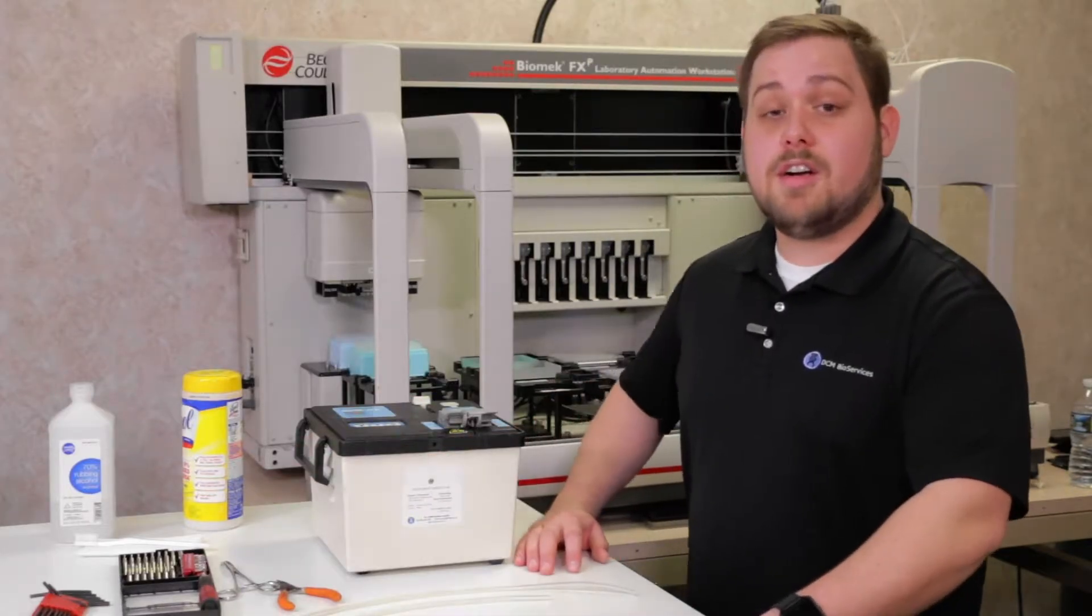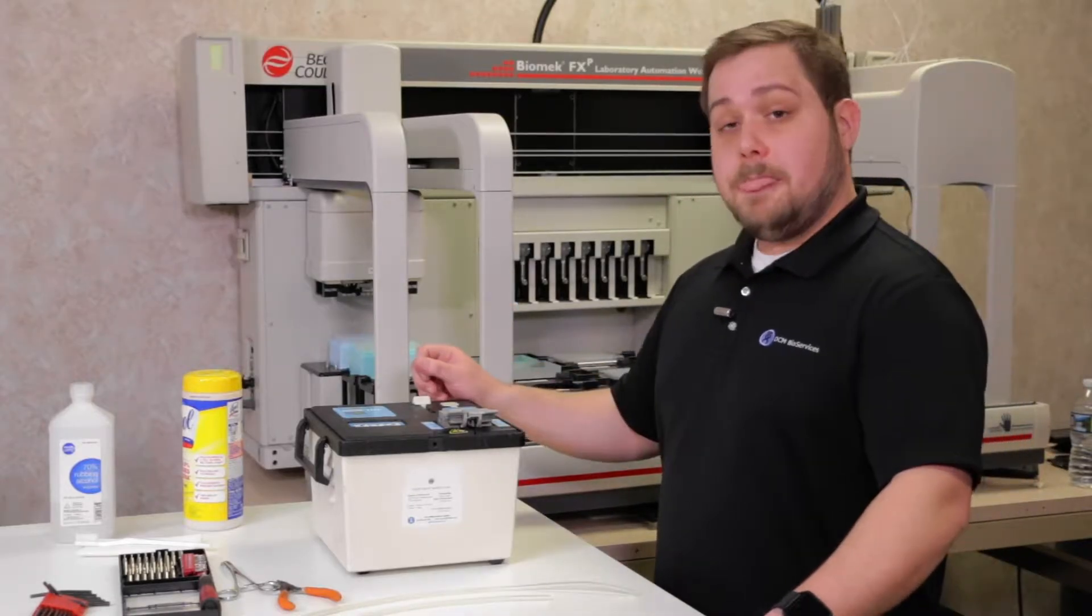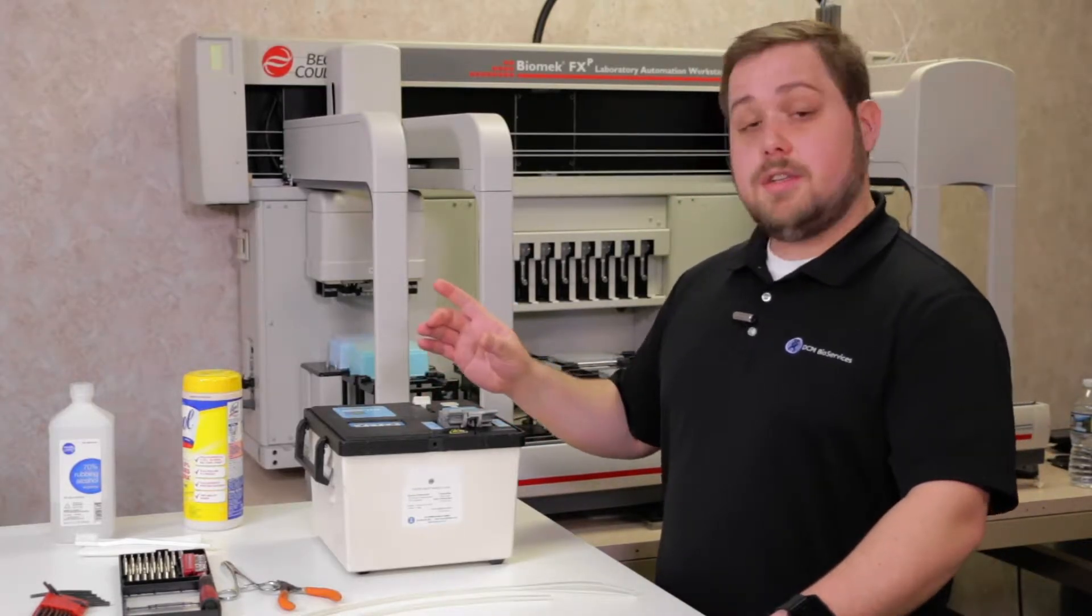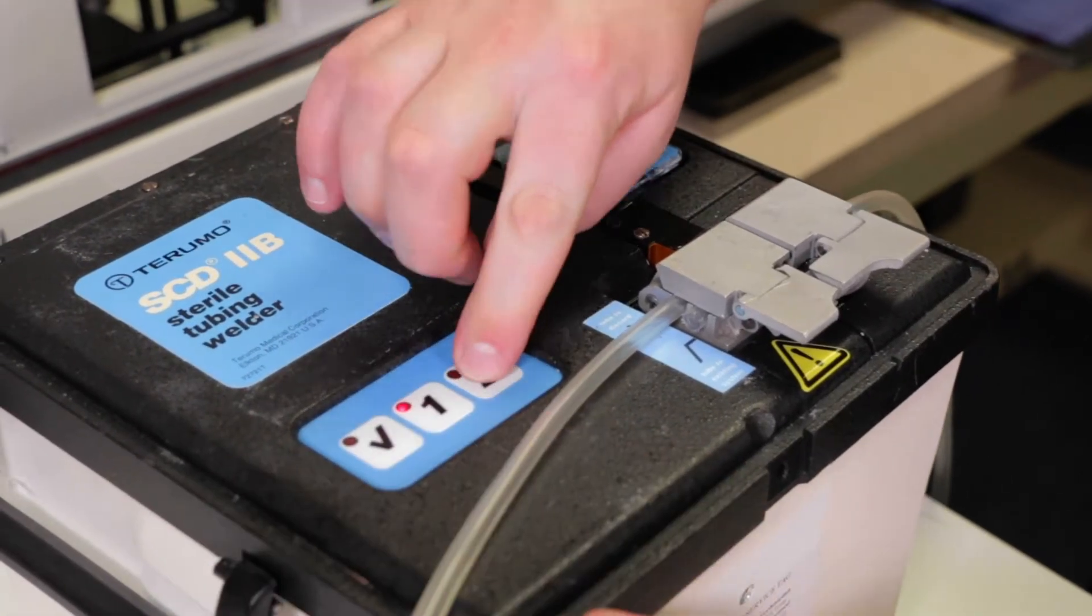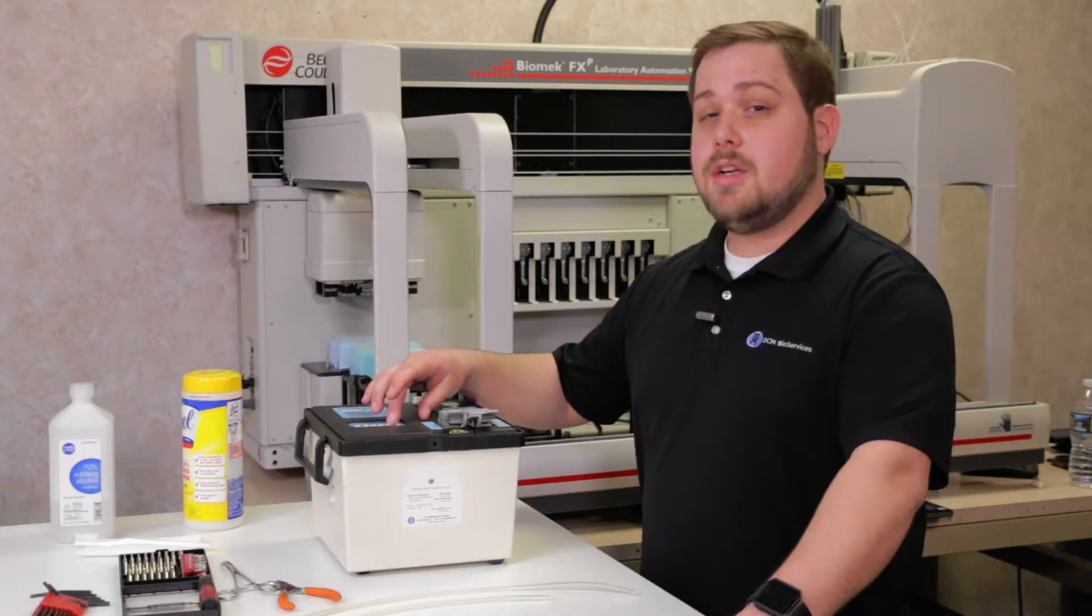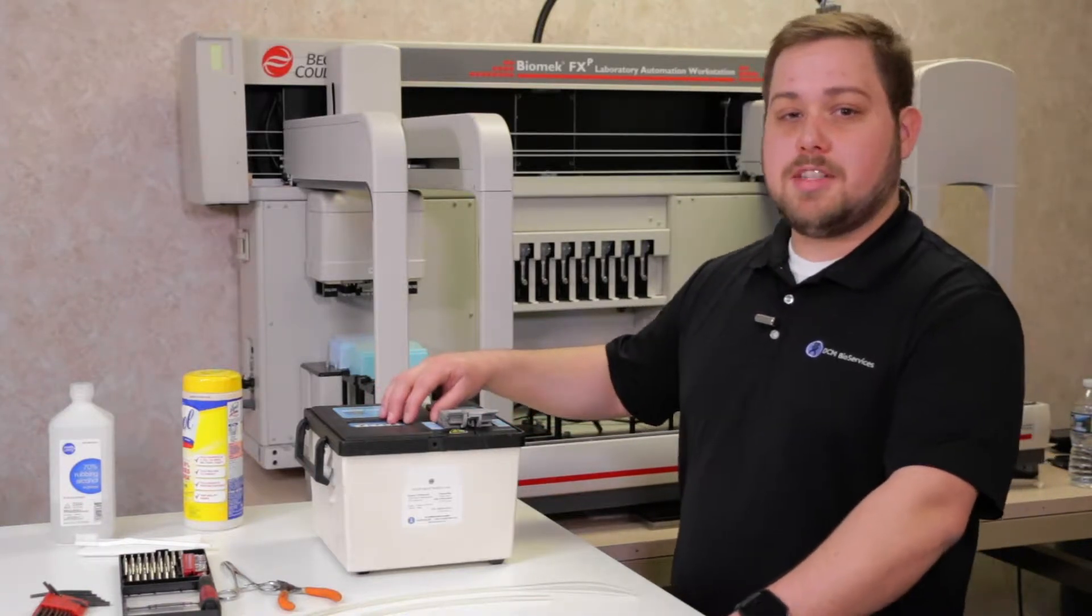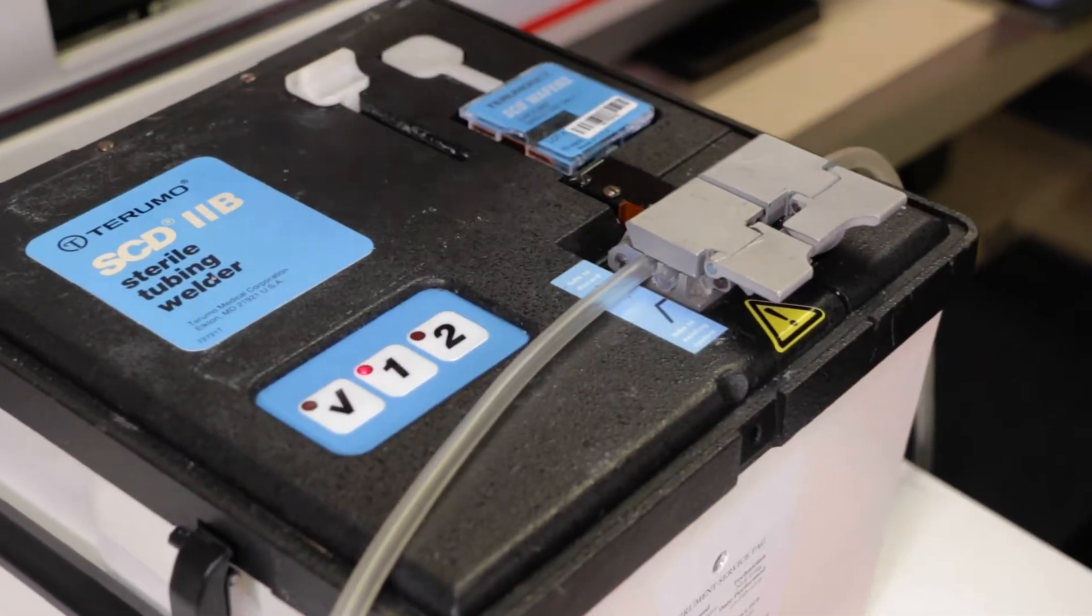Another beep that can occur is during the wafer loading process. When loading a wafer, a sensor in the rear and front of the load track will detect whether or not a new wafer has been loaded. If you hear a beep when pressing the button to begin a weld, it typically means that your new wafer hasn't been detected. Try reloading the wafer and seeing if that resolves the issue.